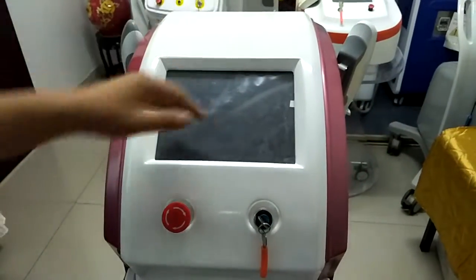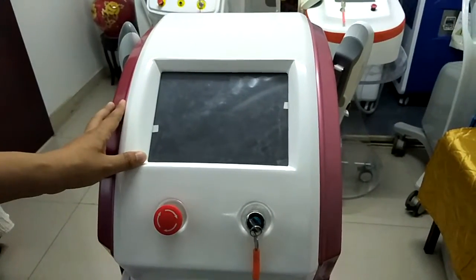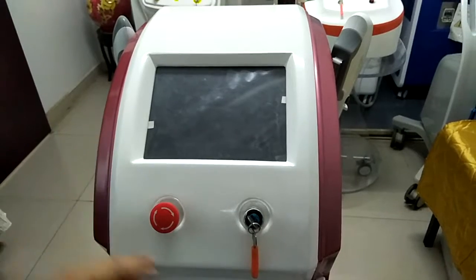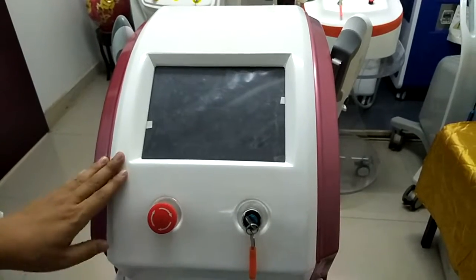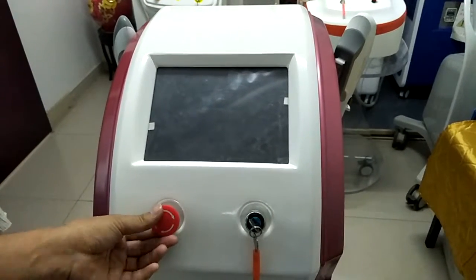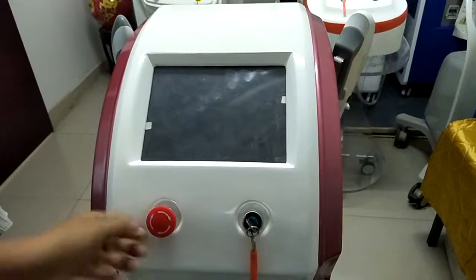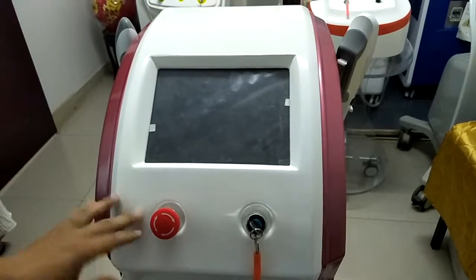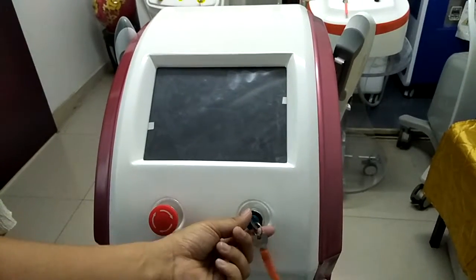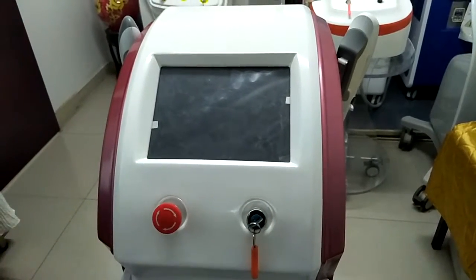The screen is 10-inch. Before we start the machine, you should make sure the emergency switch is on, and then we can start the machine.